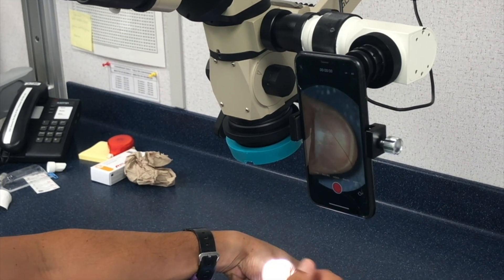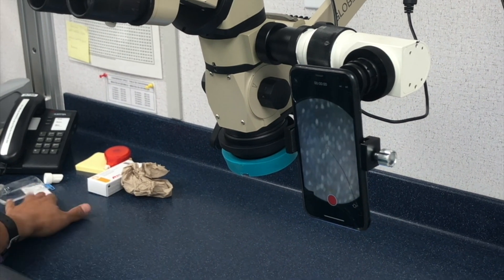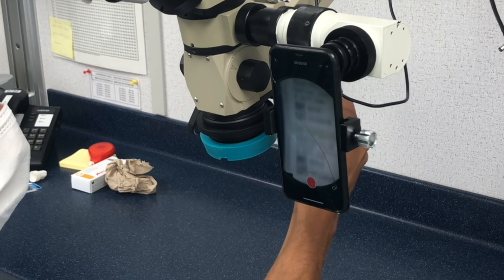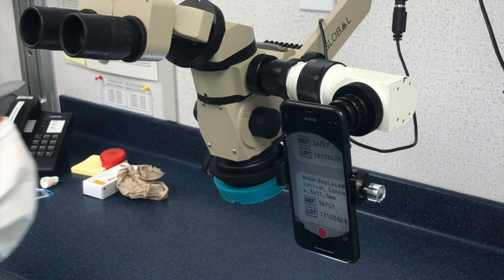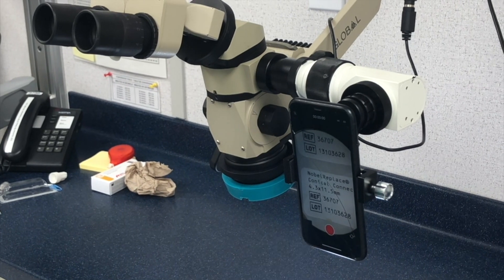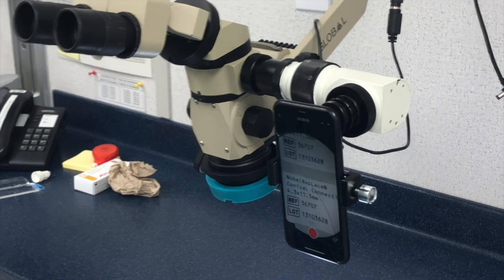See how it just zoomed in too? So it'll zoom in on whatever — or like autofocus, you mean kind of? Yeah, autofocus with the camera and the phone. This one doesn't focus, this one does. That's the beauty of it. So that's it. Cool. Thank you.